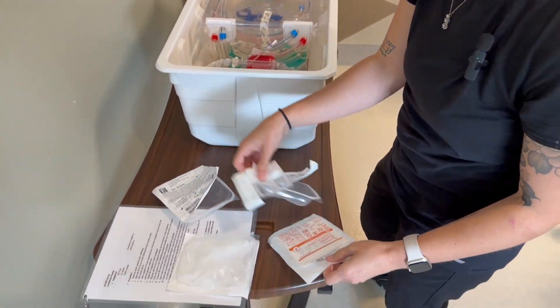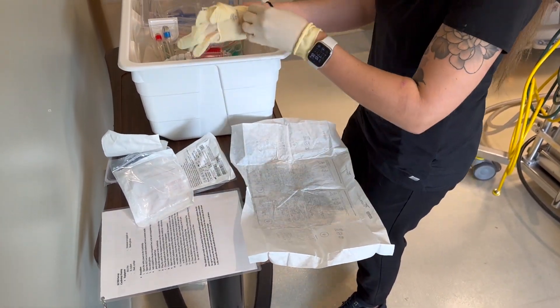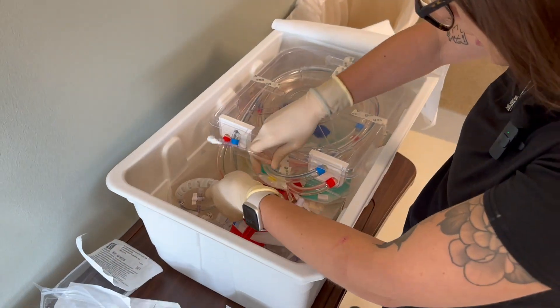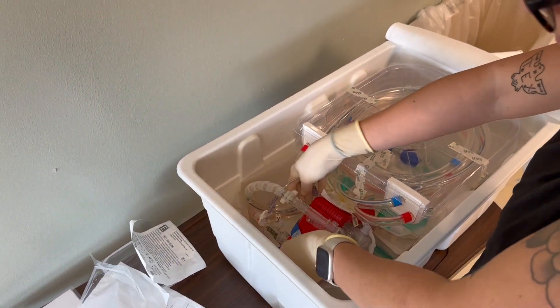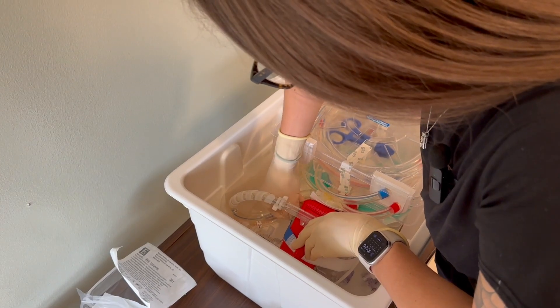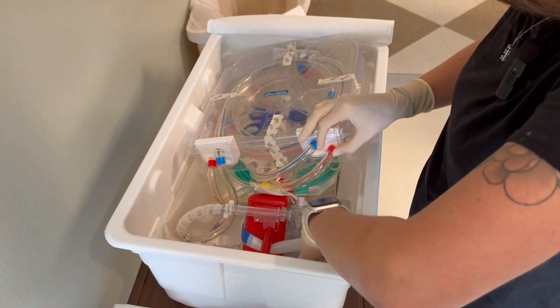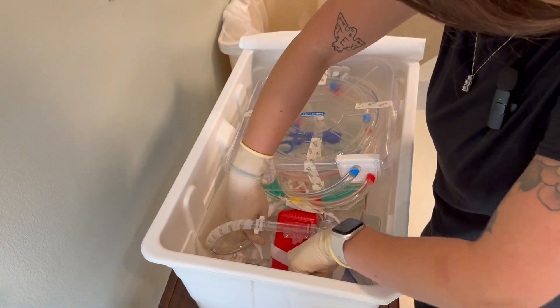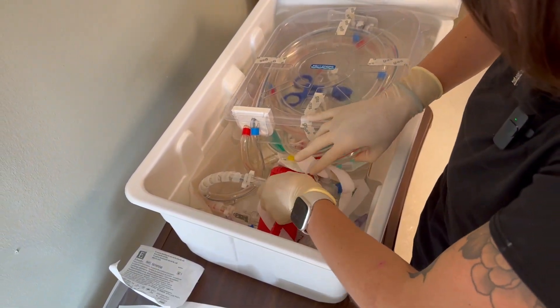Now you'll draw on your sterile gloves. Once your sterile gloves are on, you're going to attach your pigtails to the pre, post, and the other pre box of your oxygenator. Sometimes it's easier to take off the velcro strap that's on the oxygenator. Once the straps are removed, you'll be able to move the oxygenator around in the box.